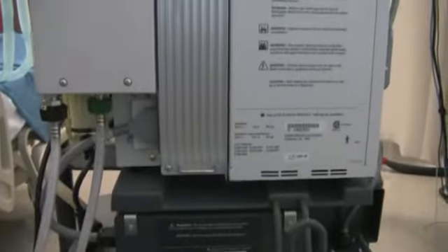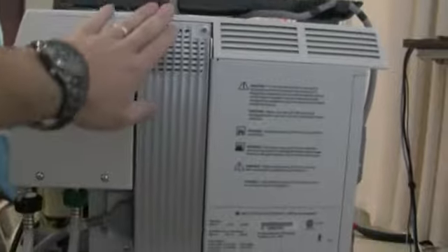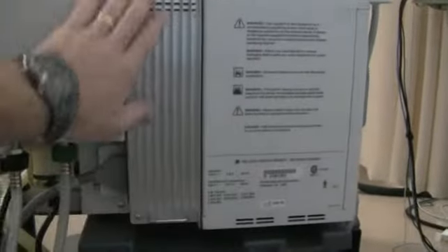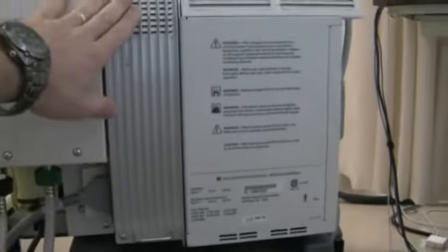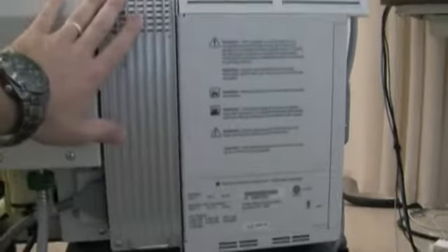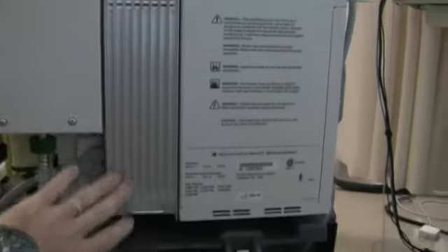On the back of this machine, there's not really anything down here except there is a cooling unit right here. This actually helps keep the machine cooled off, so make sure not to cover this or put anything that may catch fire up against it. You can see a little better our air and oxygen inlets here and some of our other cables that connect up.